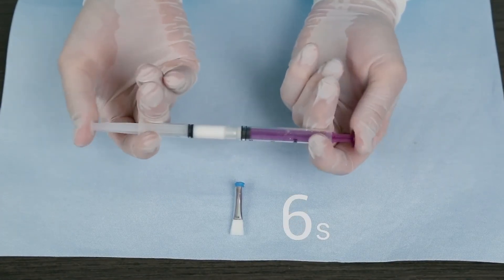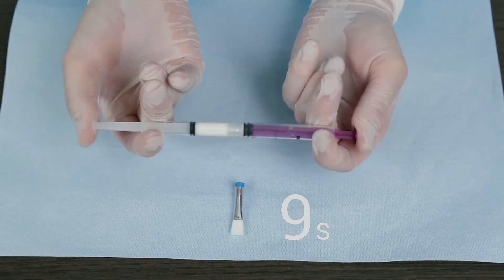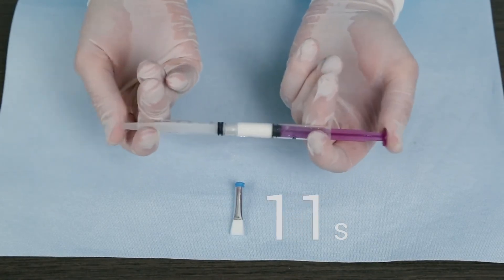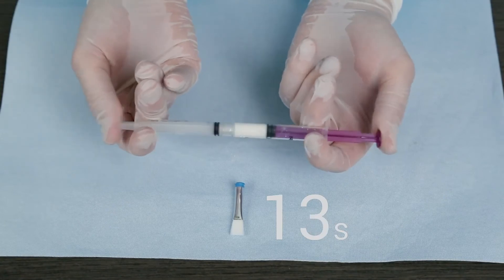Consider using a timer as it is easy to lose track of time which will cause the product to become too viscous to apply. The formation of tiny bubbles in the mixture is normal.